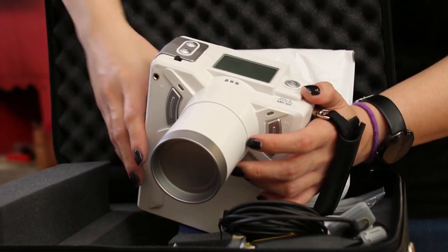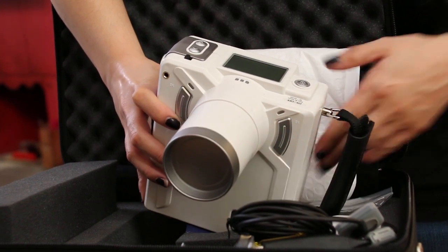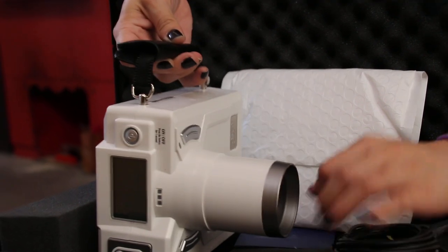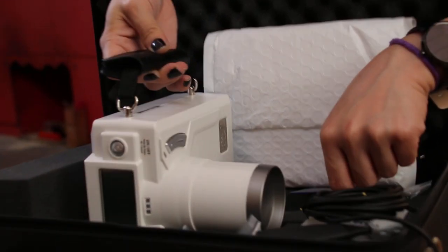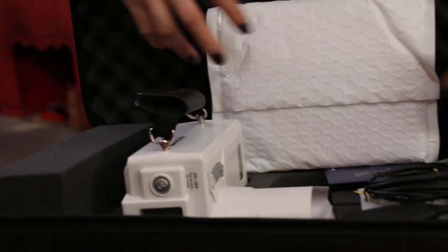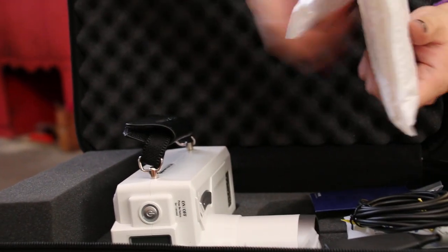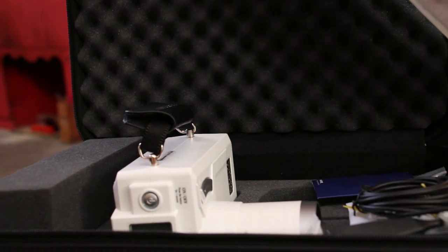So apparently they don't need to have lead lining onto the doors. Anywhere you can take pictures. Then there is also a screen, there is an additional screen at the front. Back scatter shield. You can see from here, the screen. It's a back scatter shield to protect the user.